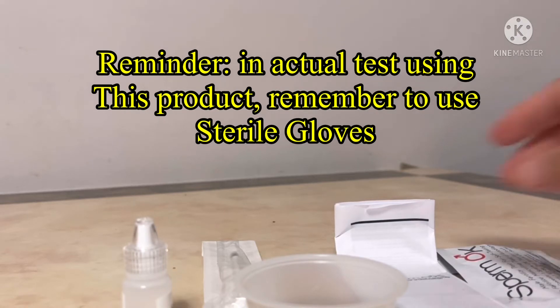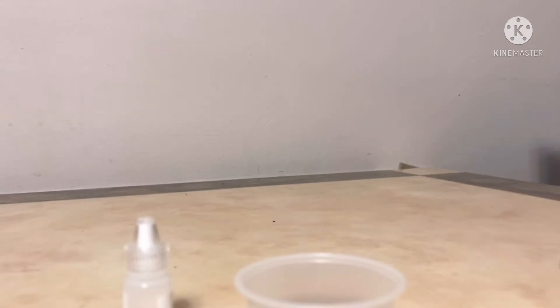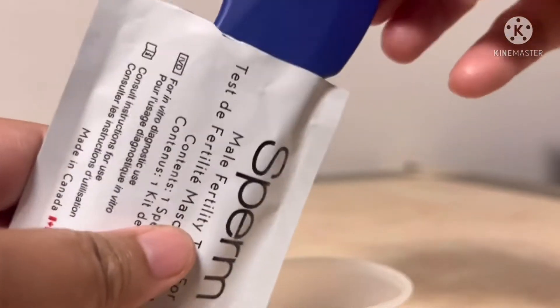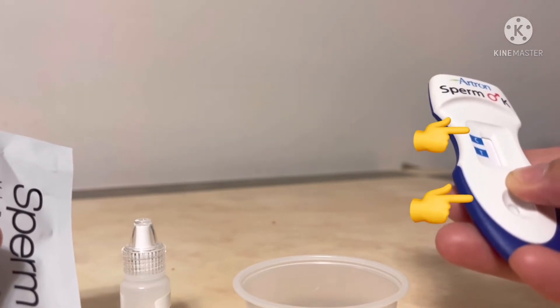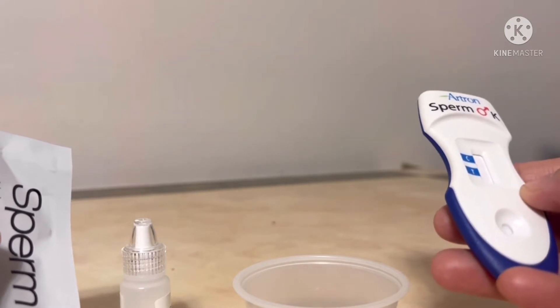Let's begin and see what's inside. So this one — don't hold it at the center. You can put the specimens in, and it should be sterile.